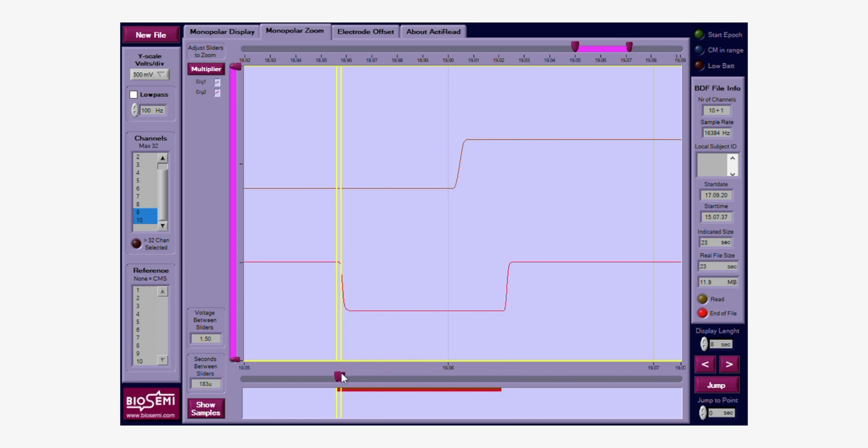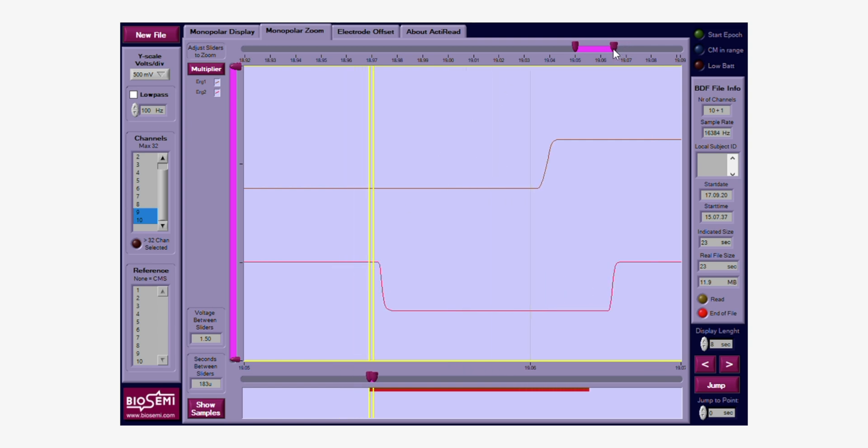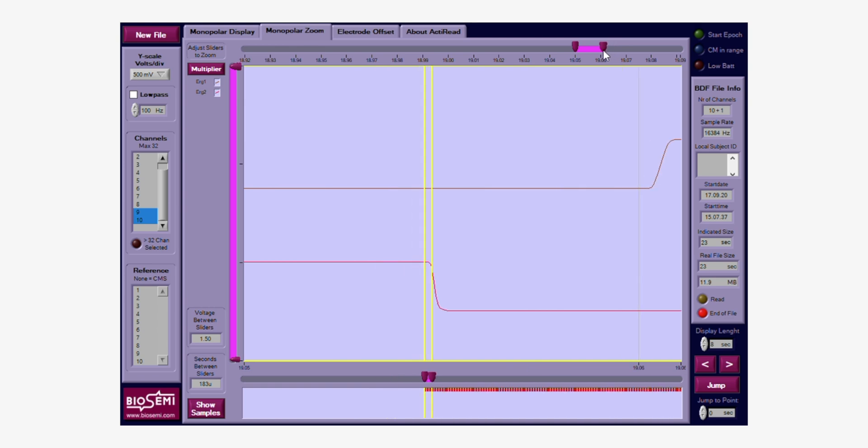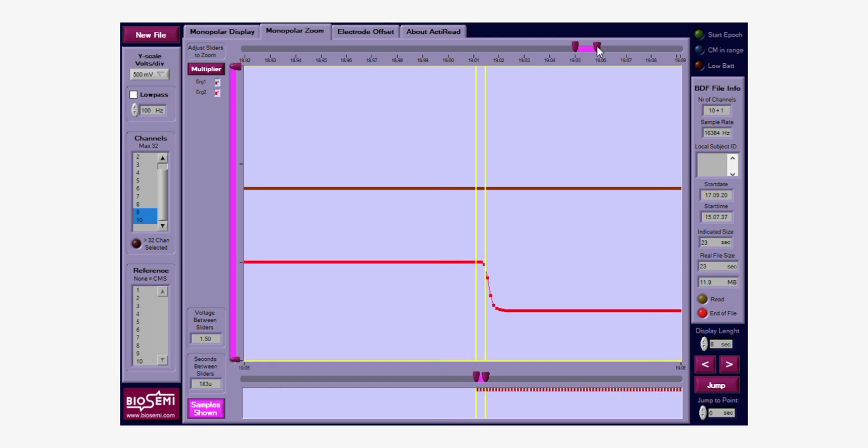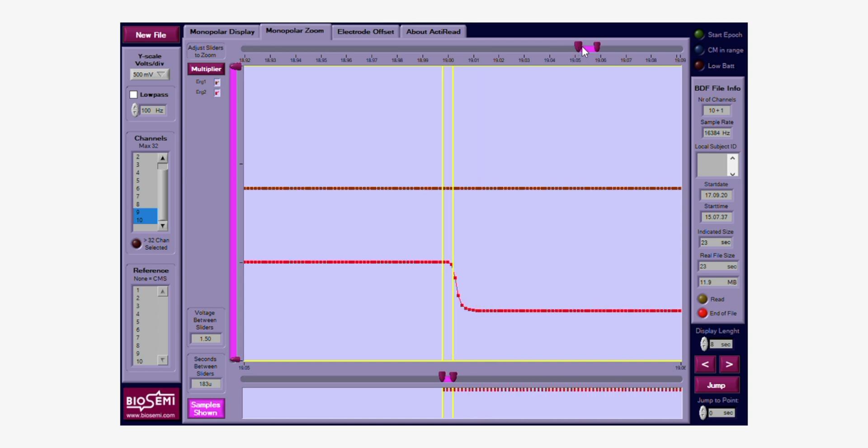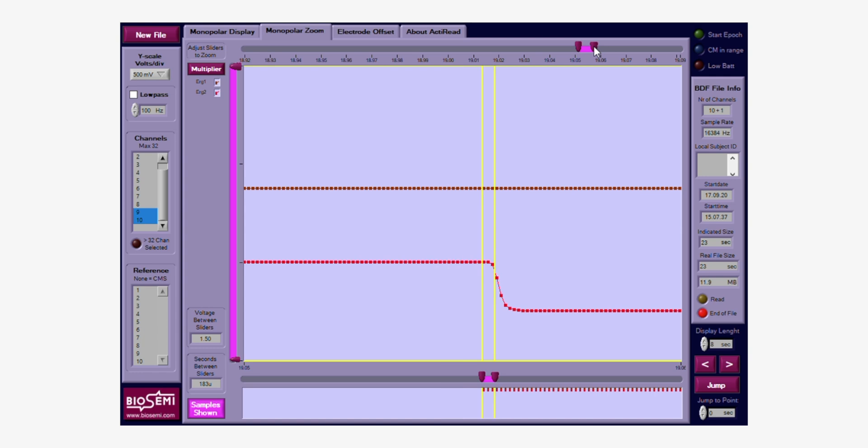But we can't really see nicely so we need to do a little bit more zooming. We need to stretch, stretch, stretch. Now we can start even to see the samples when we actually—this is really a nice feature. So we can actually pull more and we can see the actual response now really zoomed in. So we can see every single sample and remember we're recording at 16 kilohertz. So we'll put this marker to the onset of our trigger.